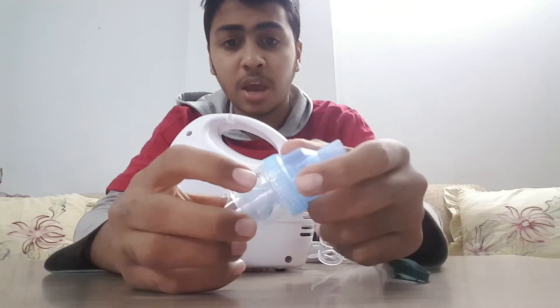The other end goes into the mouthpiece. This works like an air compressor — it sends the liquid medicine as a fine mist into your mouth, nose, or body. The medicine goes in as a fine foam or mist. This is mostly used for asthma and people who have nose problems.